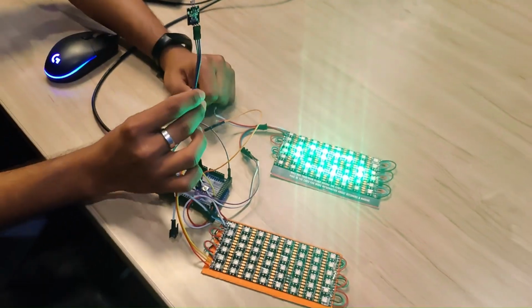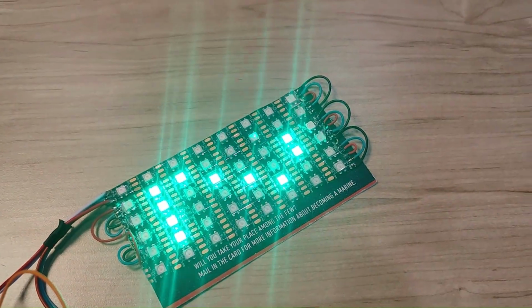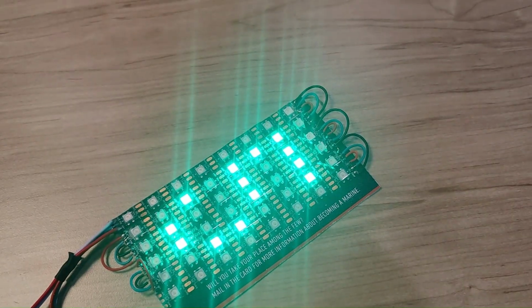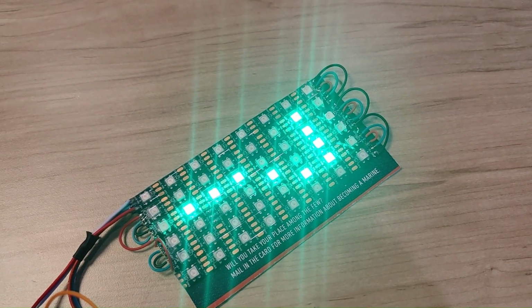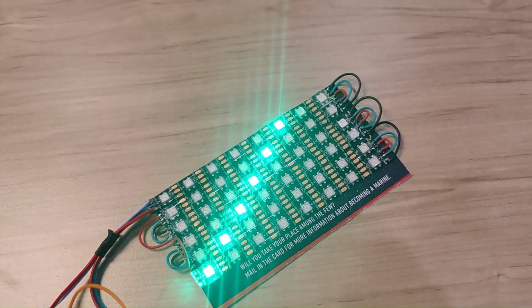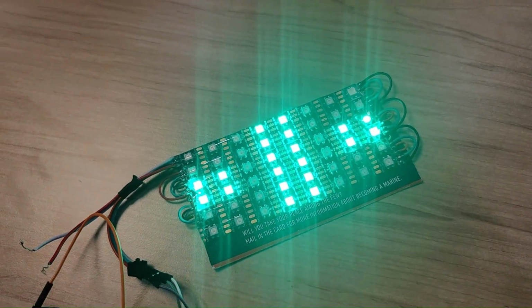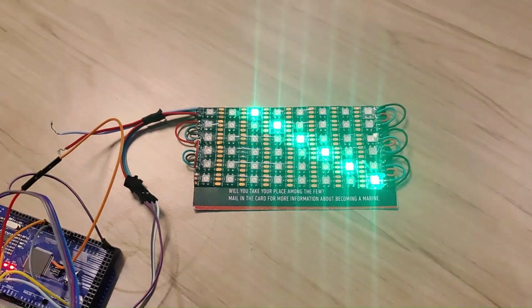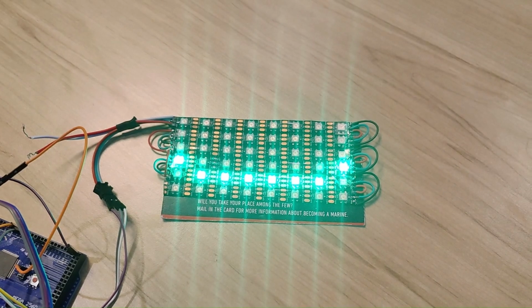Here you can see the display light up, and it will now be going through the series of numbers first, 0 to 9. And then it will move on into symbols, and then it will move on into the alphabets. So this is one way that we can use the functionality, when there will be various things. We could even come up with some different characters that we can show up on such a display, and it will really give the therapist their freedom to choose what they want to show.